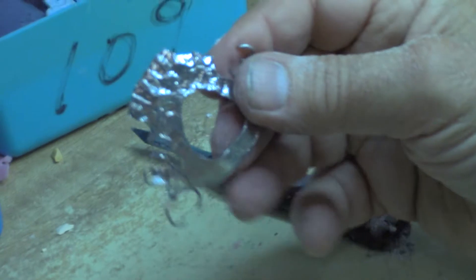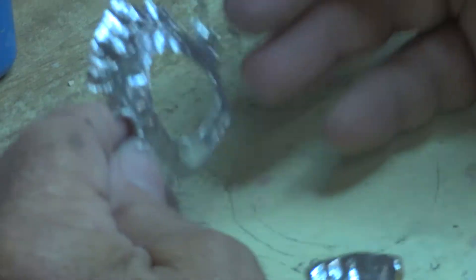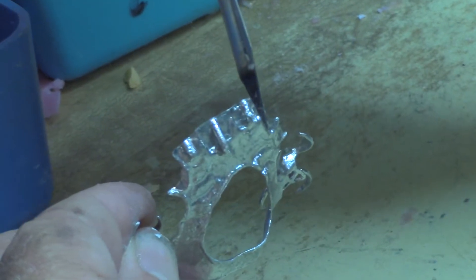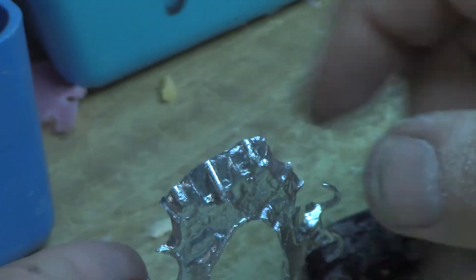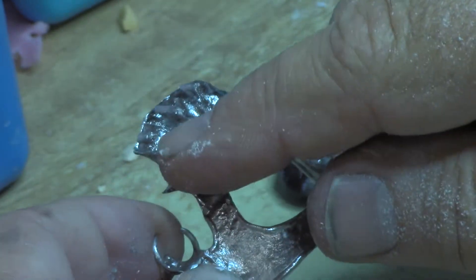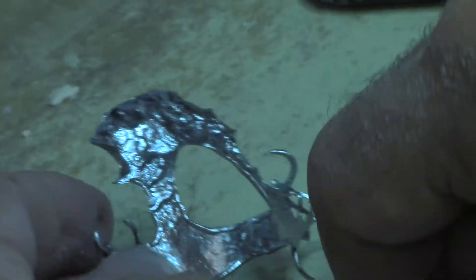For this one here, I had three of them. I fit it but I haven't cut the grooves in yet. If you look at the grooves, they all should be going in the same direction — they shouldn't be tilted, although these are tilted a little bit. When you do more than one, you want to have those kind of parallel, so when you duplicate you can slide it out of the flask. Otherwise it rips them off. I did this twice — the first time it ripped off one of the prongs and I had to readjust it. Just a little note when doing more than one.